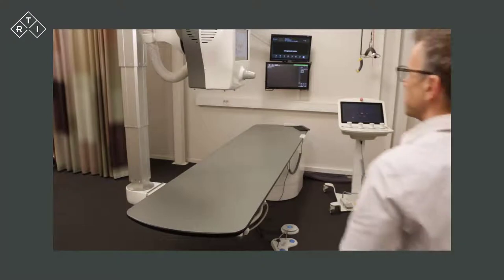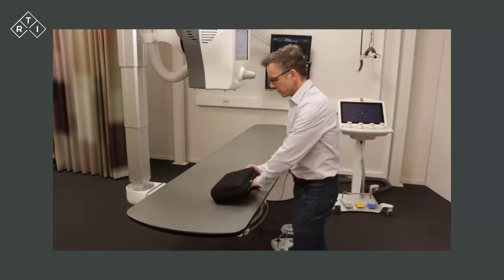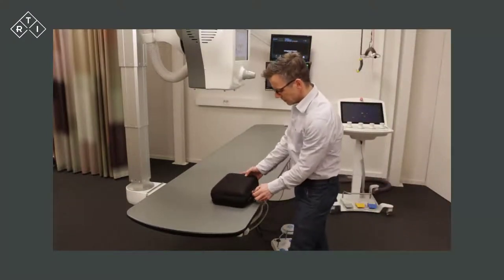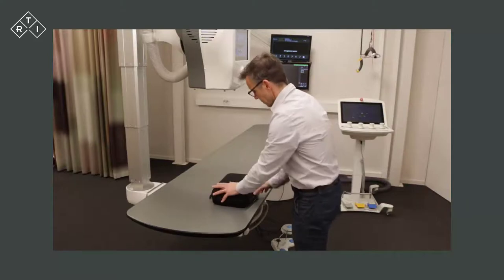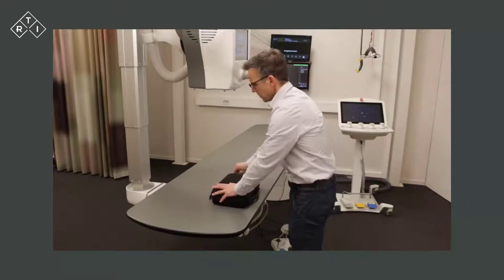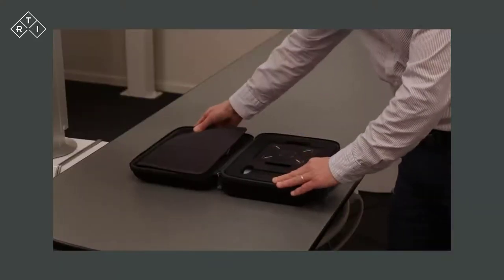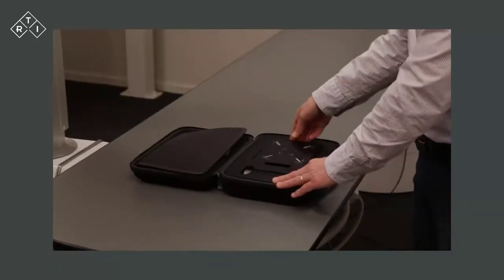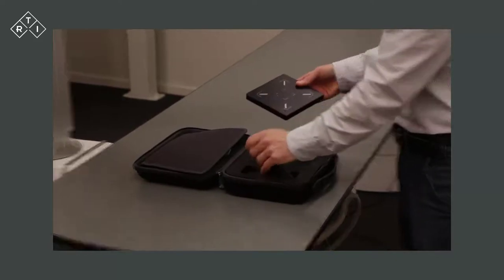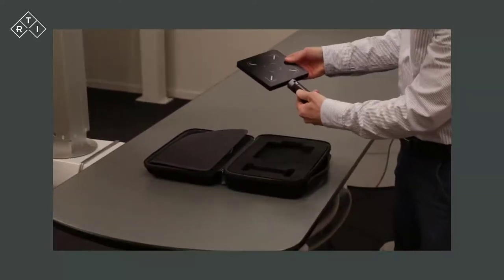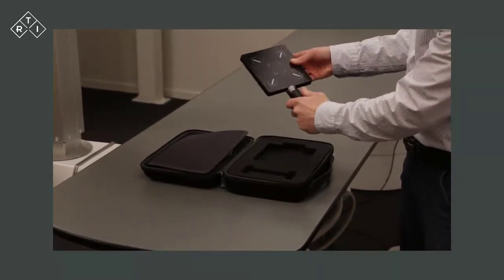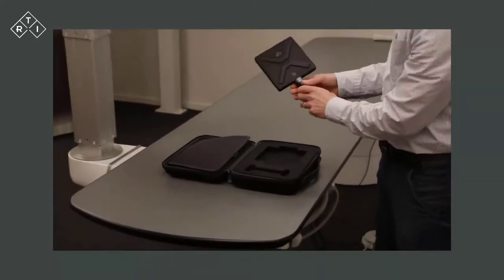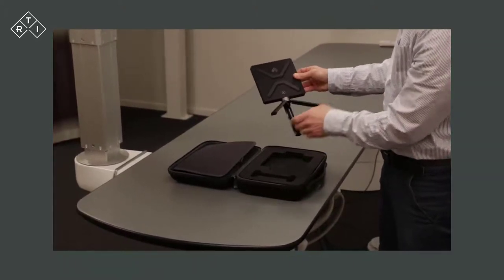The Scatter Probe is shipped in a soft shell case together with a USB cable that connects to a Windows tablet or laptop, which acts as the display unit. There is also an attachable handle that can be converted to a tripod, which allows the user to place the Scatter Probe on a suitable flat surface.